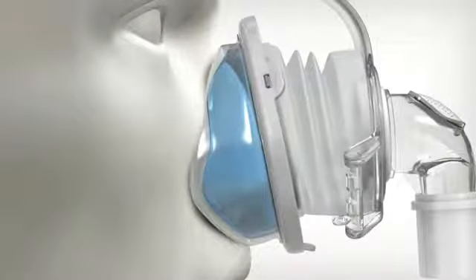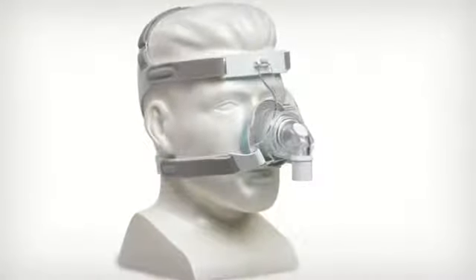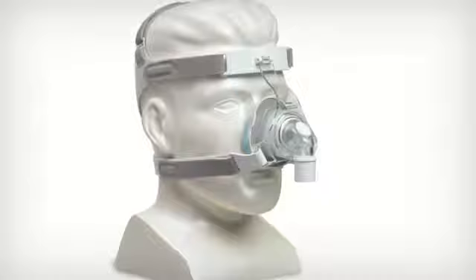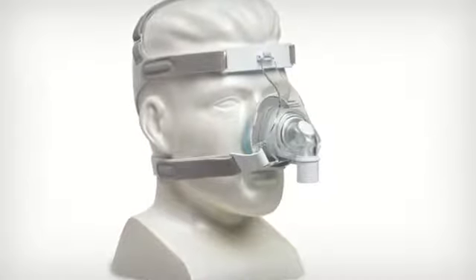Working together, these breakthroughs add up to the True Blue Gel Nasal Mask with AutoSeal technology. The complete package that is designed to your highest standards.